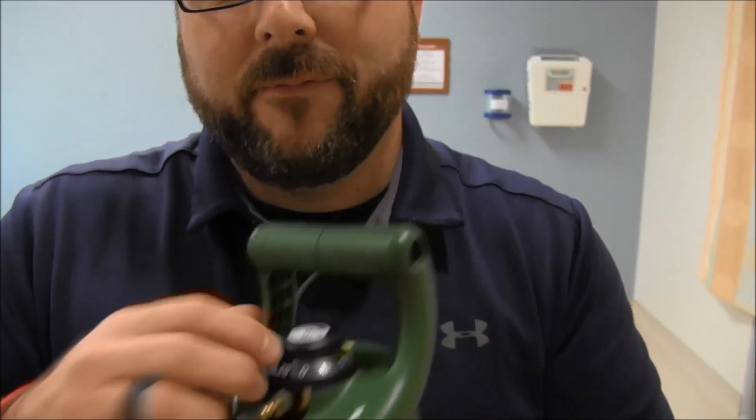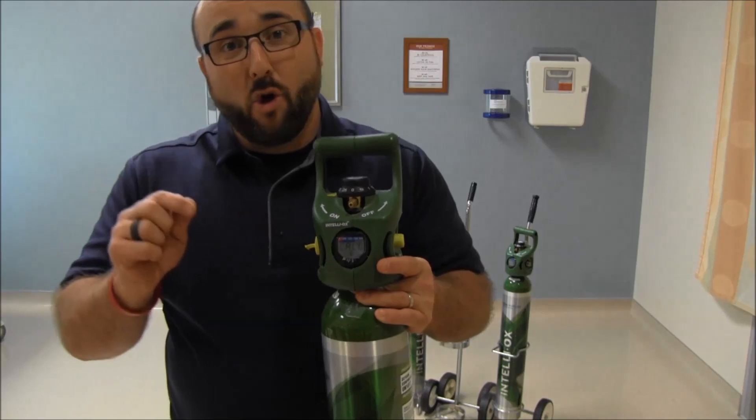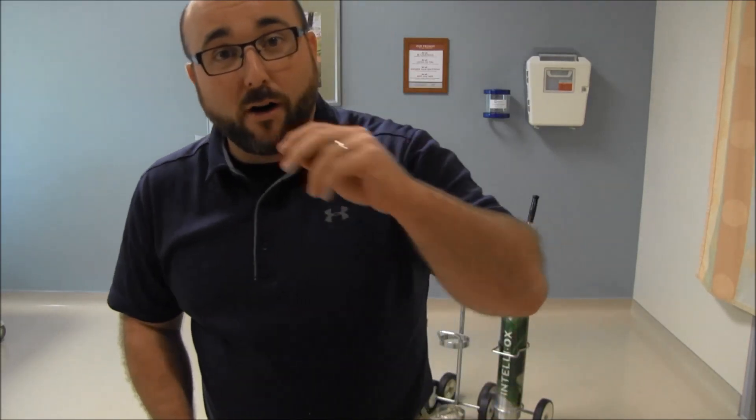This unit has built-in alarms. There are two different alarms. The first alarm goes off at about 500 PSI — about a quarter of the tank left — and you'll get a couple of beeps. Once you have less than 300 PSI, which we'd never take tanks down to before, you get a couple more beeps, essentially telling you that you have about 15 minutes of oxygen left to deliver.